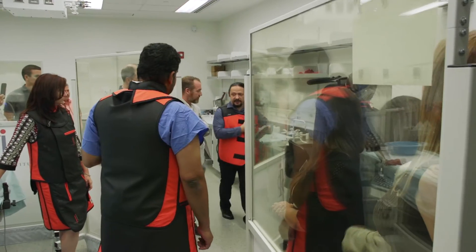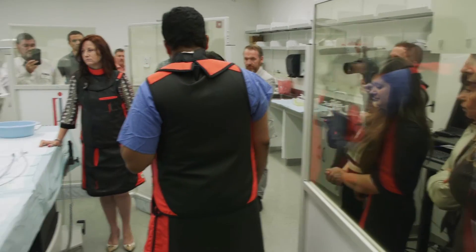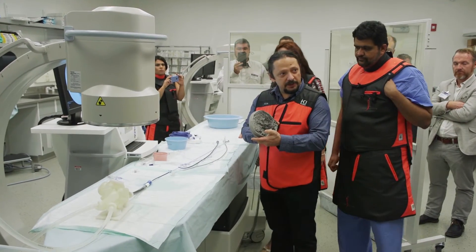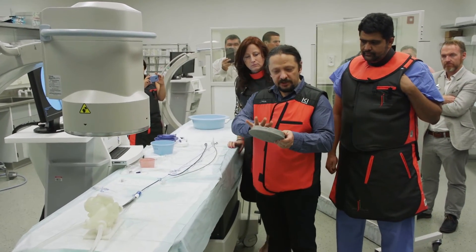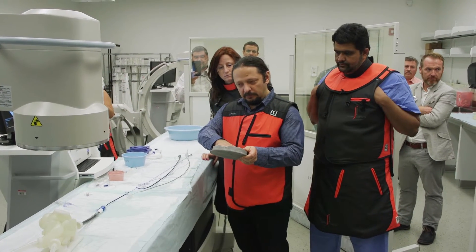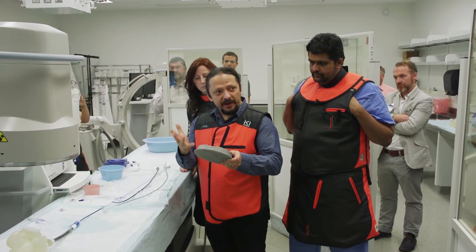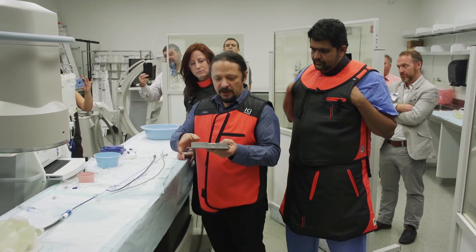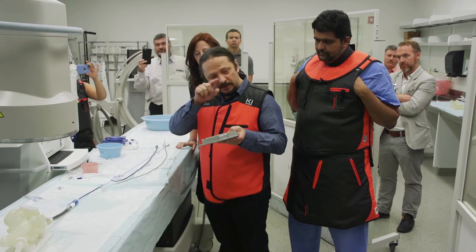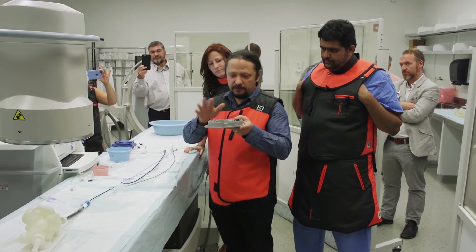As you can see, there is no anatomical noise in there — it's just a heart. What we can do is take an x-ray image at a specific energy, make a map of that and create a map equivalent in aluminum. Stratasys has printed this for us in aluminum.